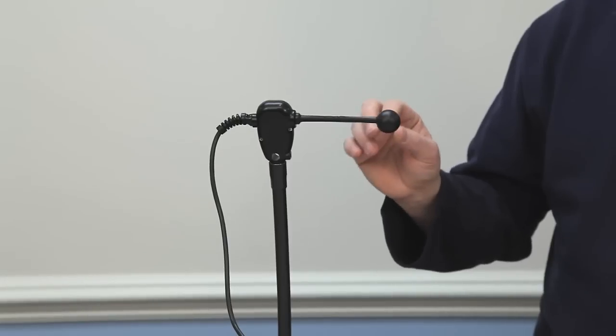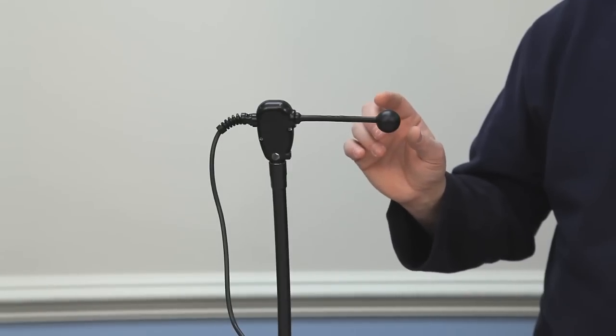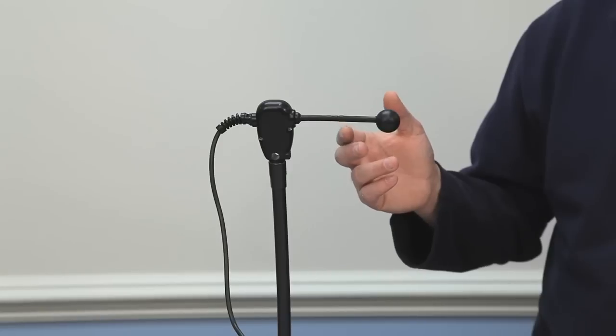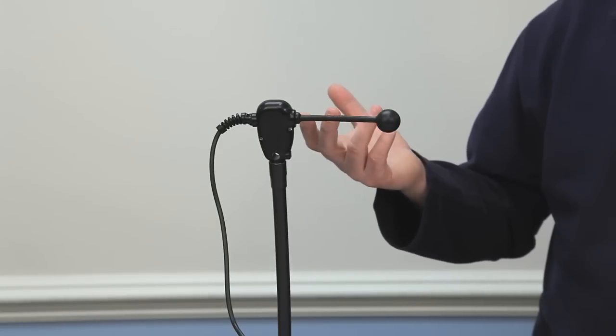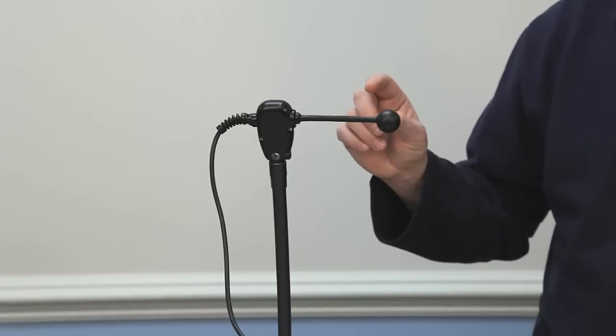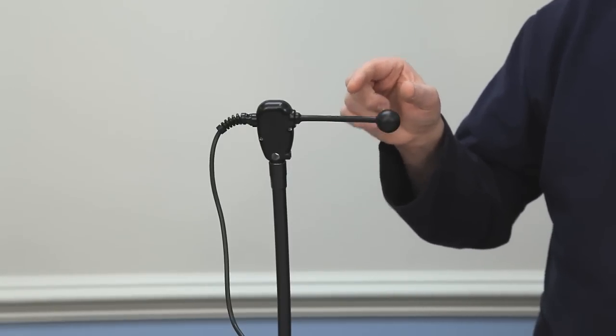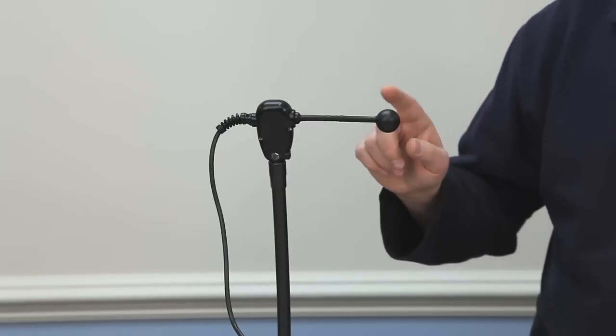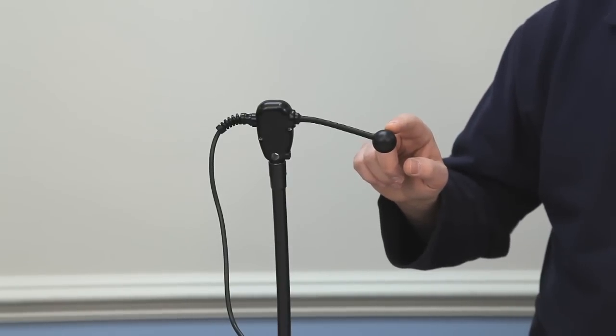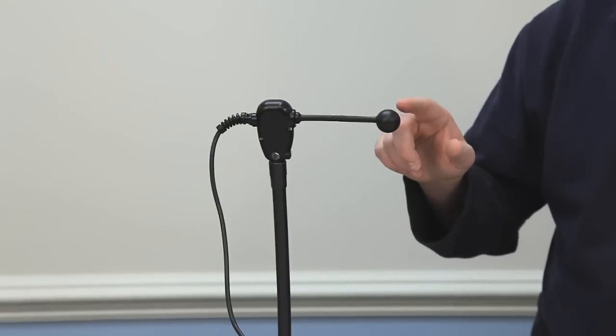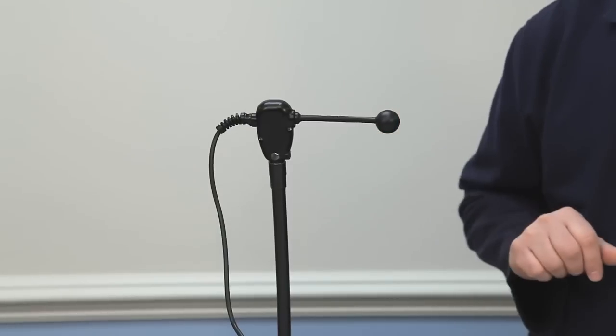This switch requires very little activation force. It is probably one of the lightest switches that we make. It only requires ten grams of force. What does that mean to the general public? A gram would be the amount of weight of a standard office paper clip. So if I took ten office paper clips and put them on top of this ball, it would activate the switch. That's how light it takes to activate this. So this is a great head switch, or any body part can activate. You only need about three quarters of an inch of movement.